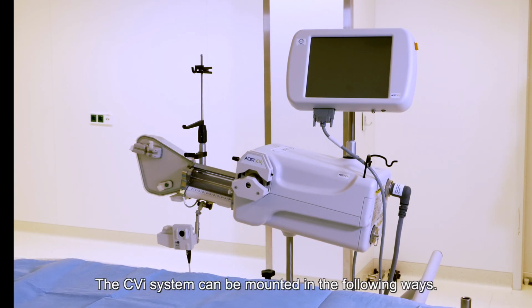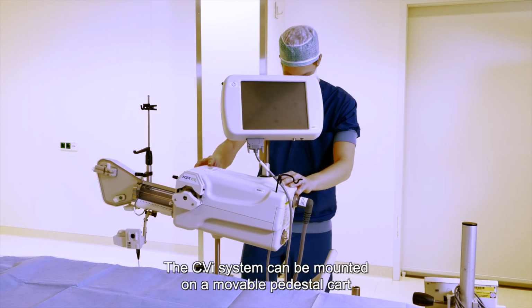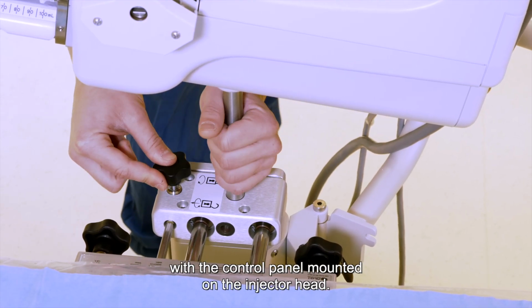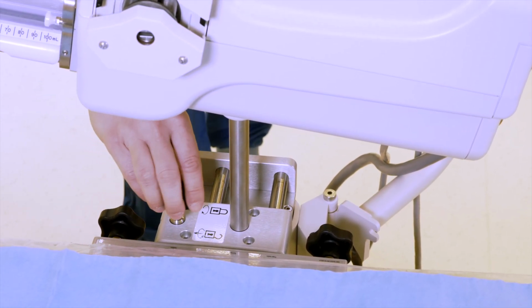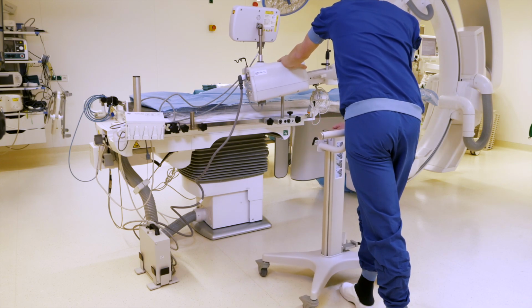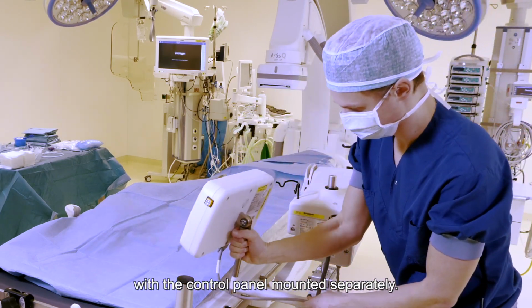The CVi system can be mounted in the following ways. These are the available choices. The CVi system can be mounted on a movable pedestal cart with the control panel mounted on the injector head. The CVi system can be mounted on a bed rail with the control panel mounted on the injector head. The CVi system can be mounted on a bed rail with the control panel mounted separately.